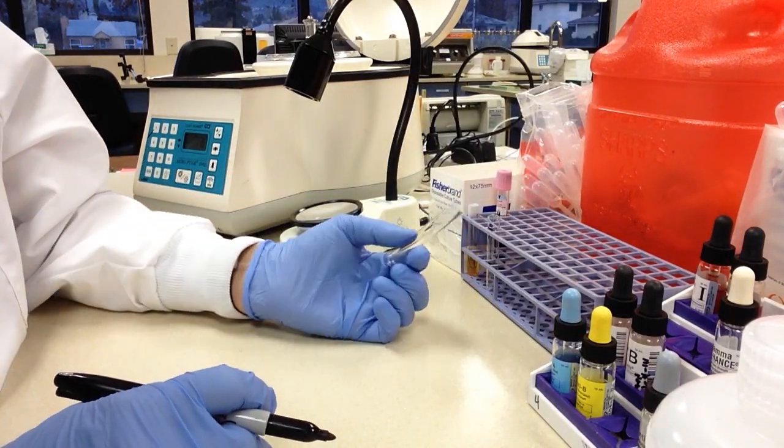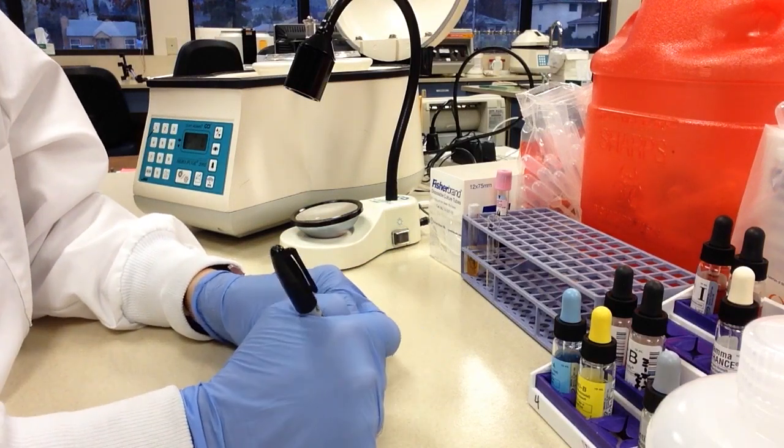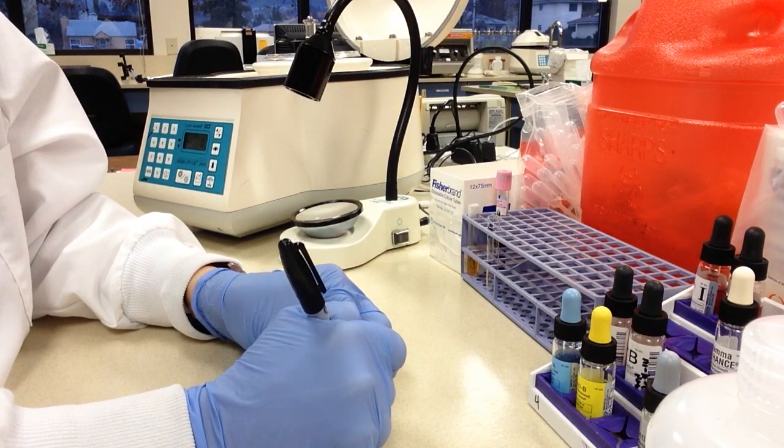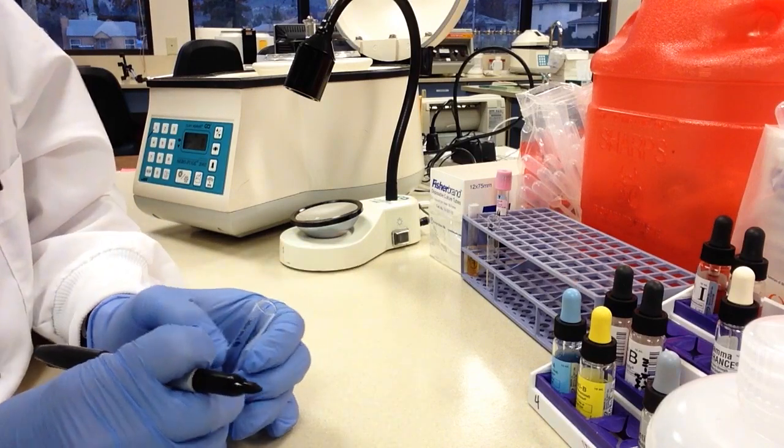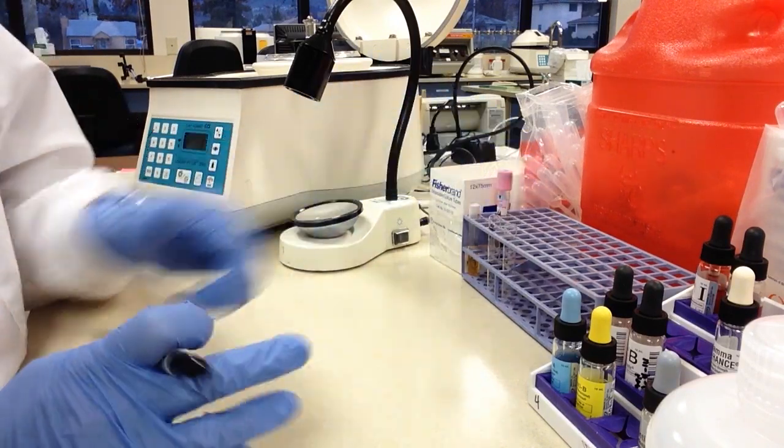Now I'm going to take another tube here and I'm going to write on that blank because I'm going to need a blank tube for centrifuging and I'll show you what that means in a moment.